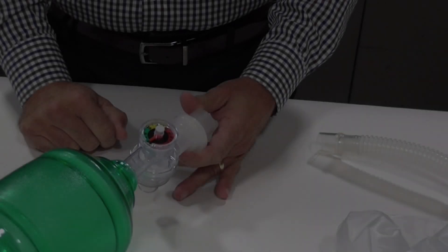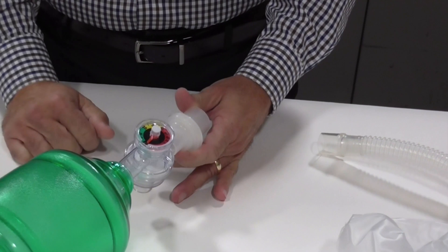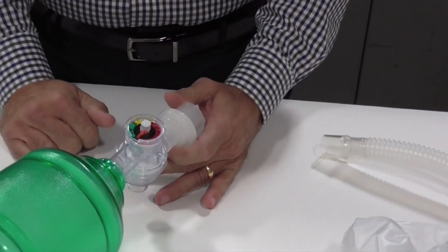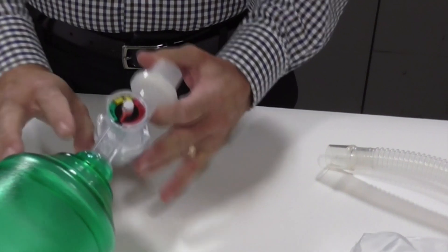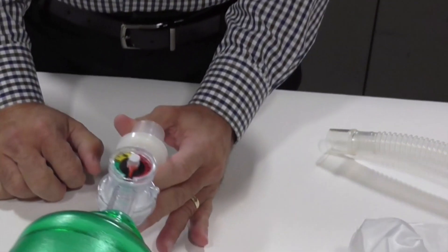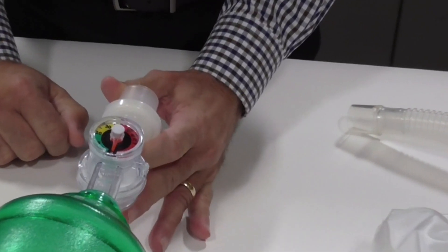Today I'm going to discuss the importance of having a manometer on your resuscitation bag or manual ventilator. The manometer can tell you different pieces of information, but ours is integrated. We have a patent for the integrated manometer, so it's built into the valve.